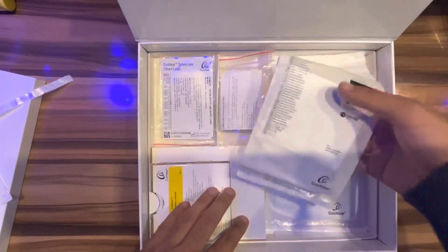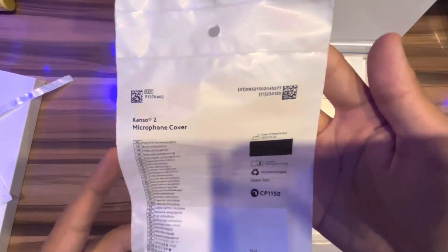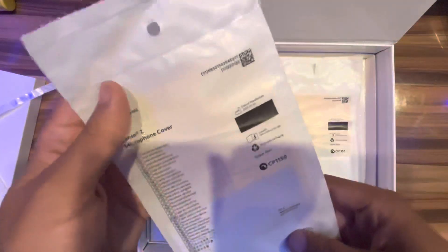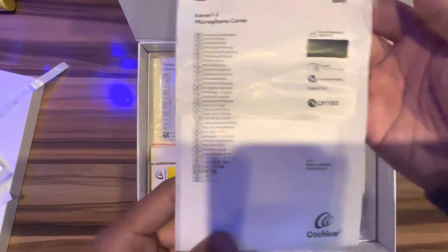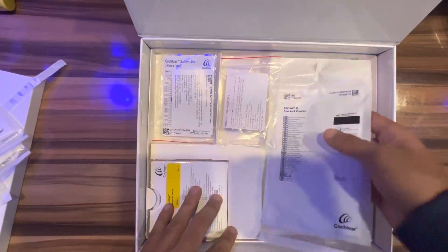This is a microphone cover. There are two microphone covers here. Also there are additional microphone covers — I have four pieces of cover total.